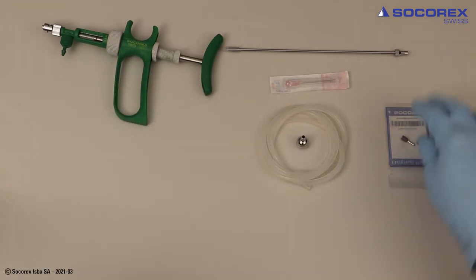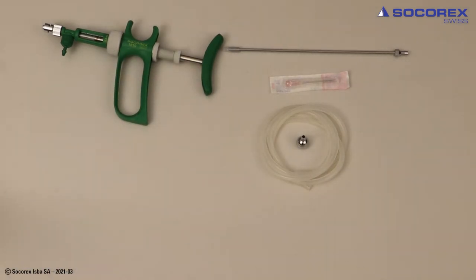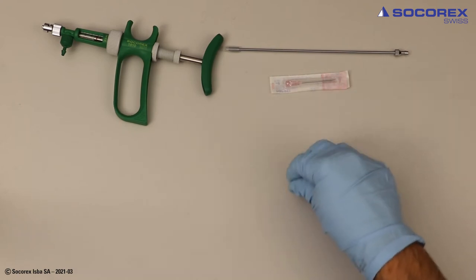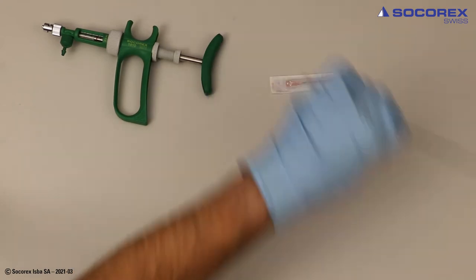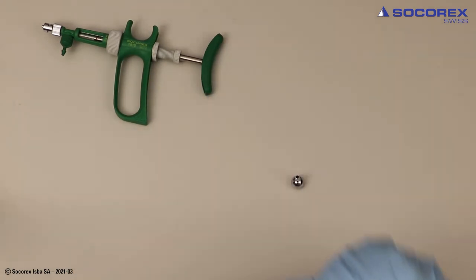Four models are available with nominal volumes 0.1, 0.2, 0.3 and 0.5 ml.